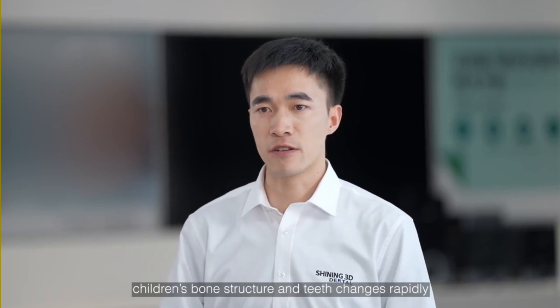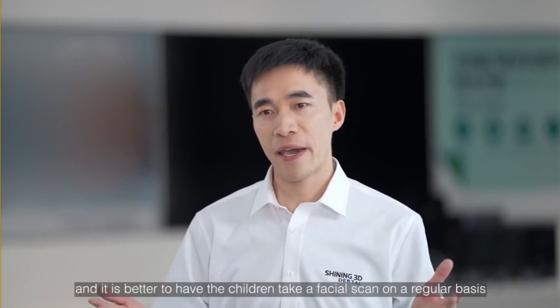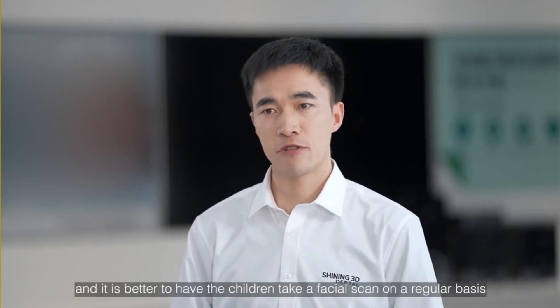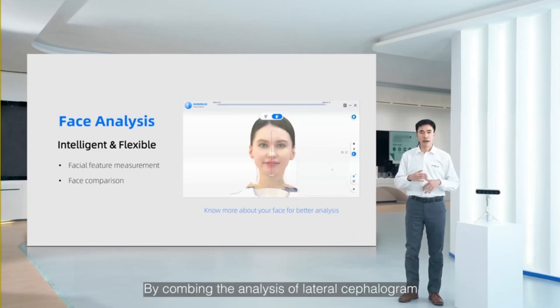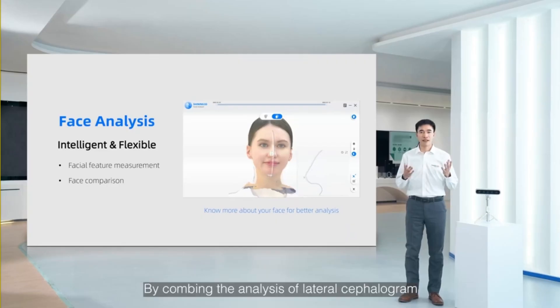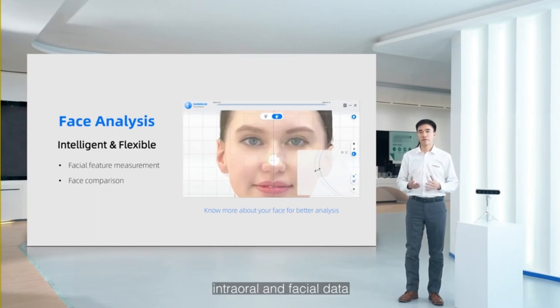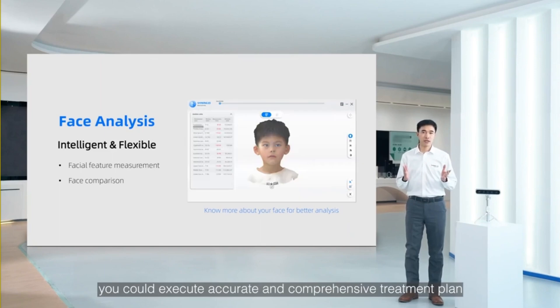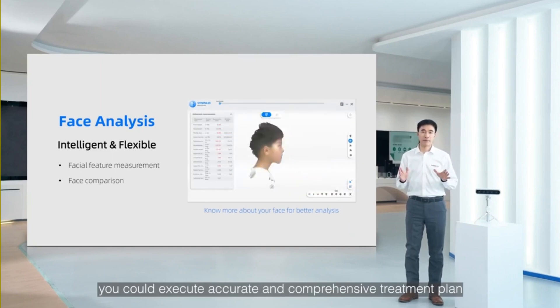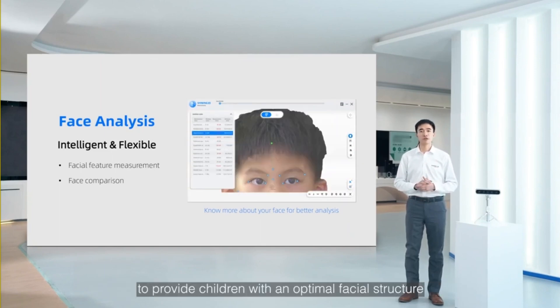Children's bone structure and teeth change rapidly, and it's better to have children take a facial scan on a regular basis. By combining the analysis of lateral cephalogram, intraoral, and facial data, you could execute an accurate and comprehensive treatment plan to provide children with an optimal facial structure.